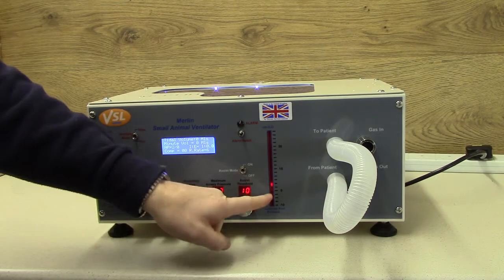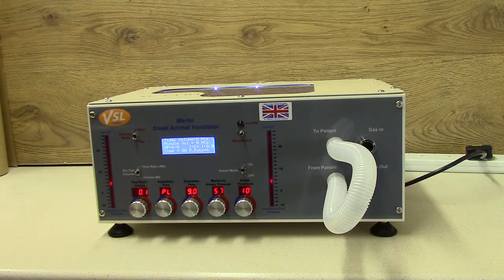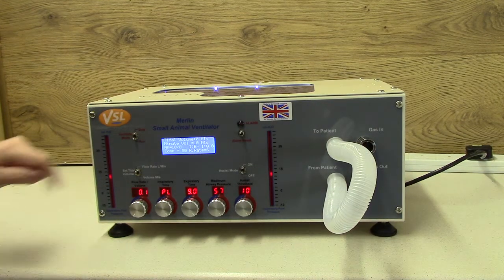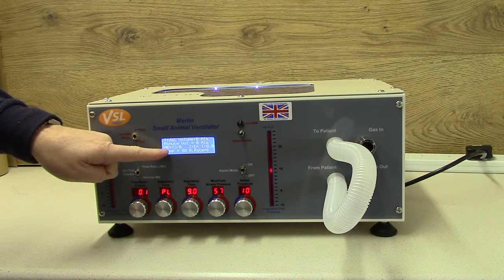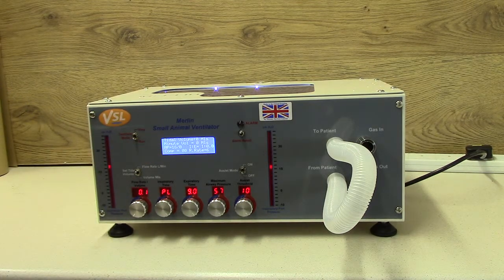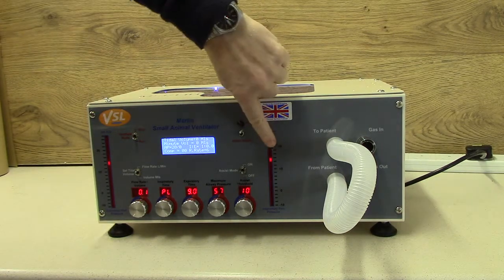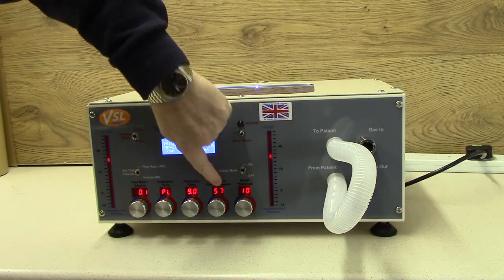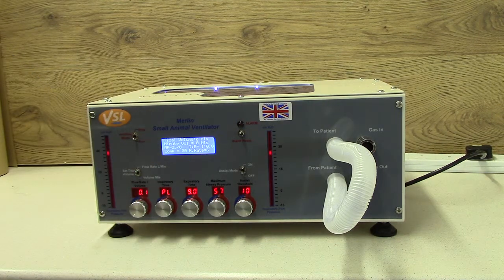You will see the inspiratory bar graph and expiratory bar graph rise in value, and on the screen you will see the airway pressure increasing as the pressure increases. We are now waiting for the airway pressure shown by the bar graph to reach 57, which will be shown by the value on the screen.